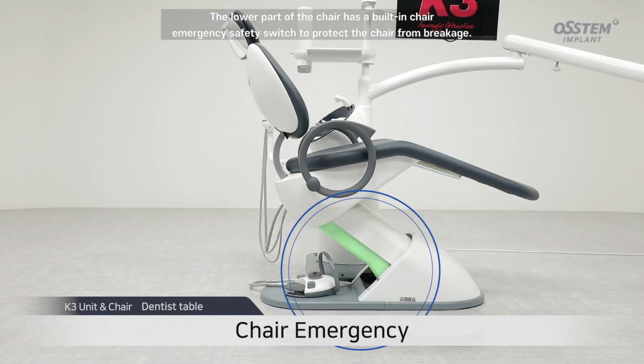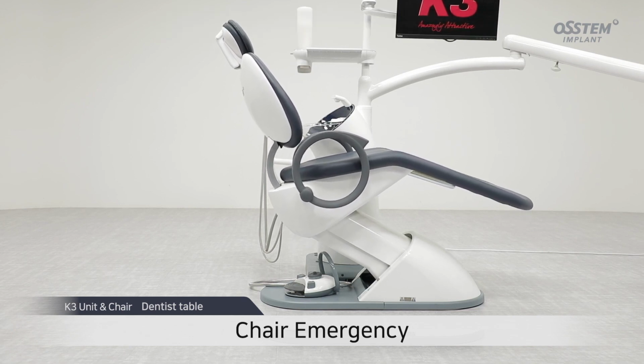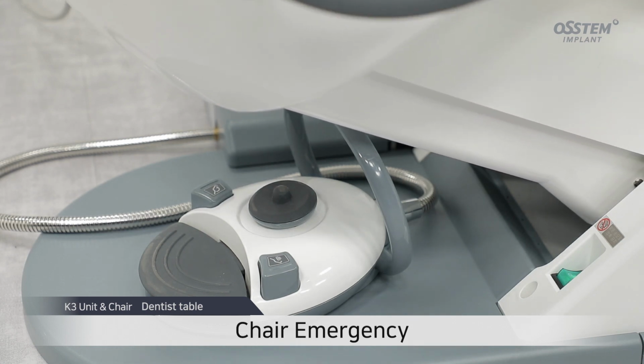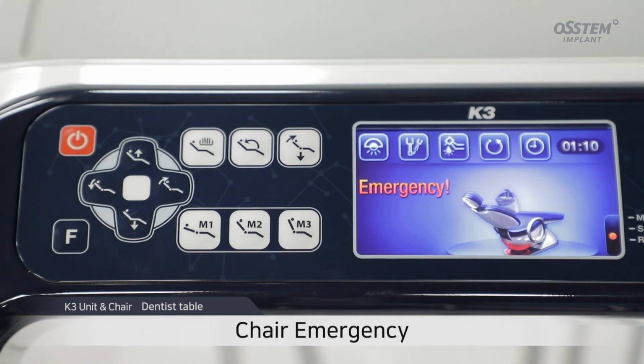The lower part of the chair has a built-in chair emergency safety switch to protect the chair from breakage. When the chair descends and the safety switch is depressed, the chair goes back up to prevent breakage and an emergency message appears on the LCD screen.